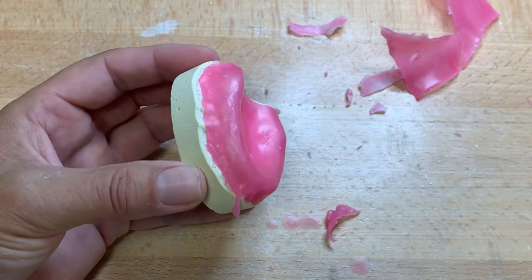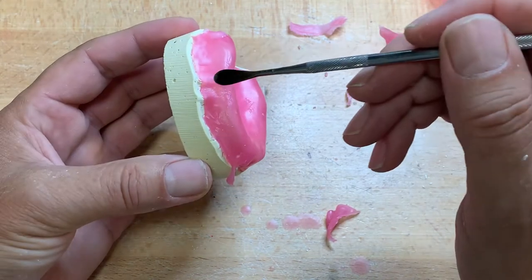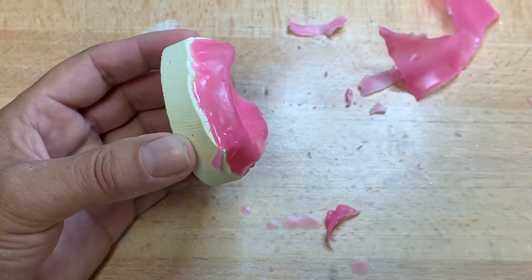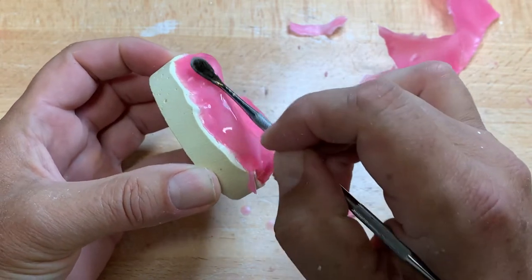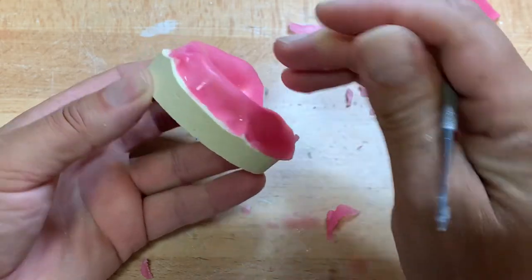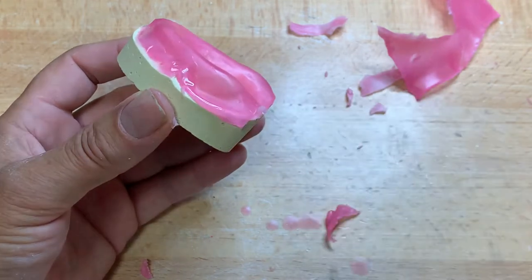In the textbook, it shows you bringing wax to the line, which is okay — providing you don't extend the tray past the line. But here at school I've noticed many students always draw a line and then supersede it, and then you have this kind of ledge or rim lock built into the tray, which I don't think is necessary. A nice even sheet of wax extended all the way down — as long as I've got no air bubbles, I'm not making it too bulky — I've blocked out undercuts, and I can see where the frena are going to be.